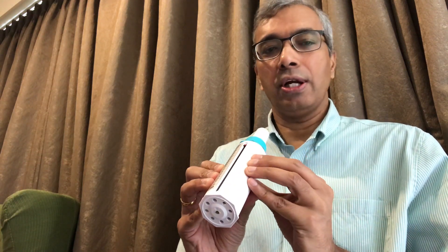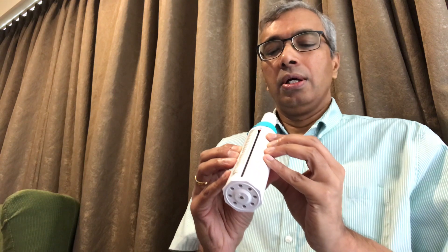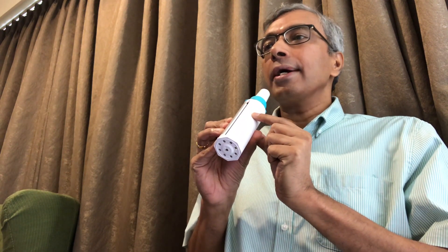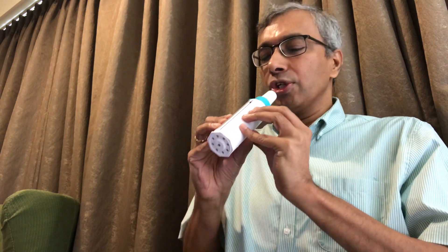Please remember that it is not meant to diagnose asthma but to monitor it. There's a little lever and a range, and what you need to do is tell your patient to hold it this way — not with fingers over the scale on the side. Take a deep breath in, place it in your mouth and seal your lips around it, then blow hard and fast into it. One hard fast blow — that's what you tell your patient.